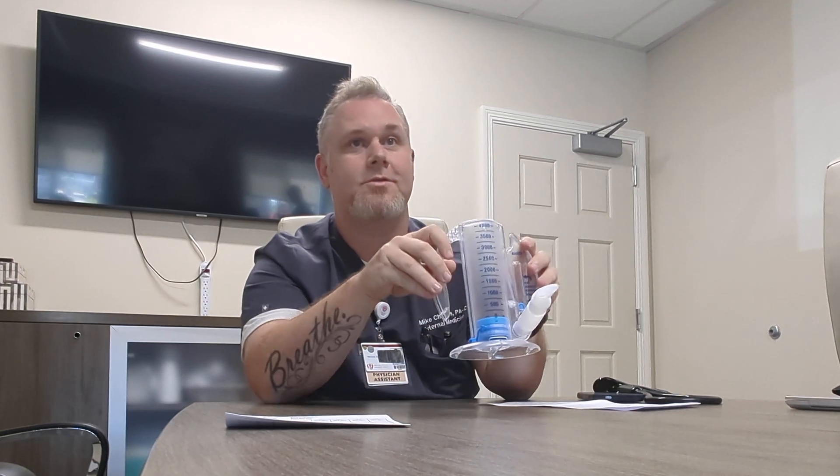First and foremost, what does it do? Increase the tidal volume of the lungs by inhaling air? Well, I do that every day sitting at my desk. It's plastic - it doesn't do anything, any more than a barbell sitting on the floor of a gym doesn't do anything unless you lift it. This is an exercise tool, and in some ways it's also treatment depending on your condition. Because it's exercise, there's a correct and incorrect way to do it.